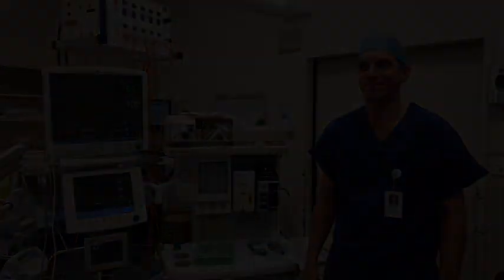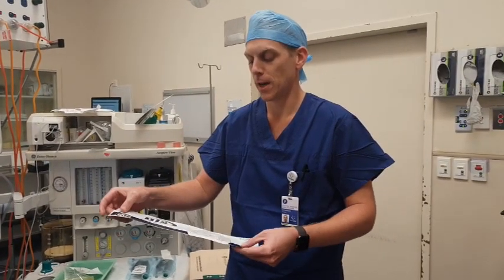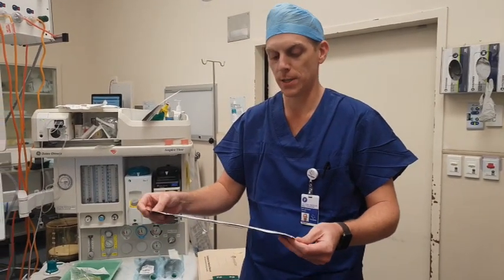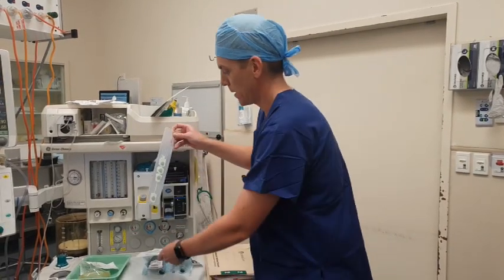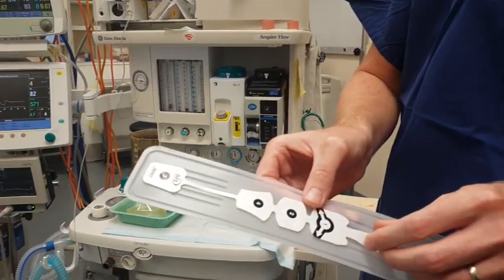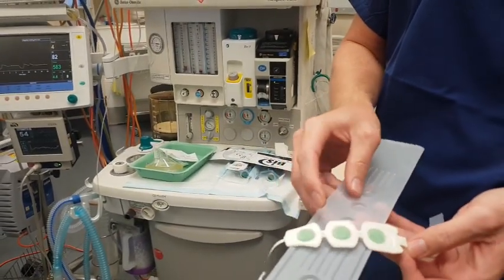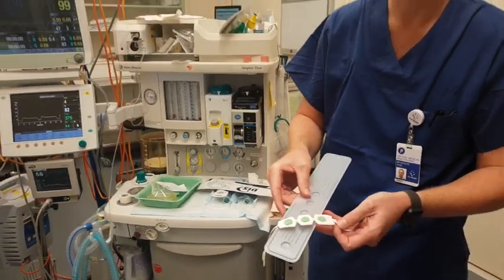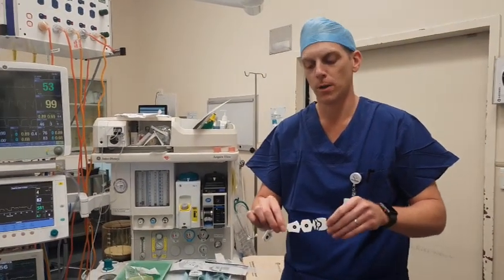This monitor is an adhesive device that sticks to your forehead. It's got four little dots, and on the back of those dots a little bit of adhesive velcro-like material. You open it up and inside you can see the little dots and the plug that connects to the monitor itself — one, two, three, four. On the other side there's a bit of gel and foam velcro-like substance.